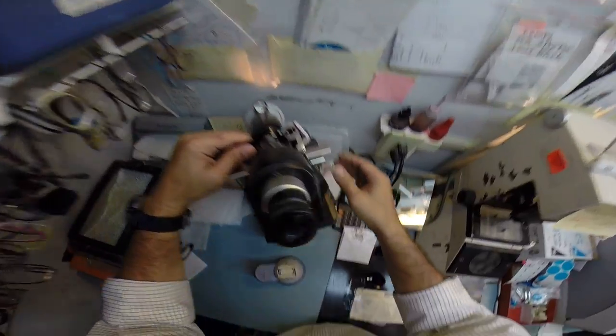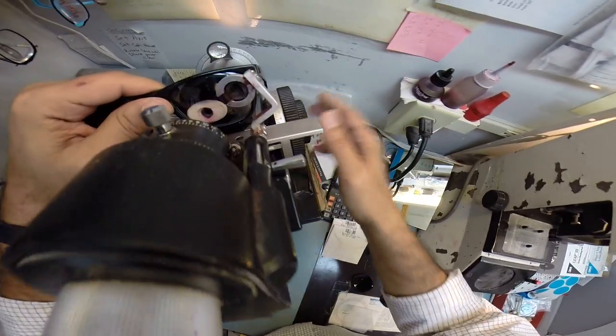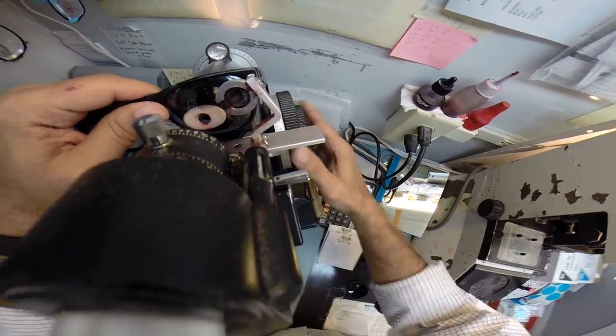And I'm going to put it in my lensometer. Read the power. No prescription in the top. Let me read the power of the bifocal. Plus 250. So we're good to go there.